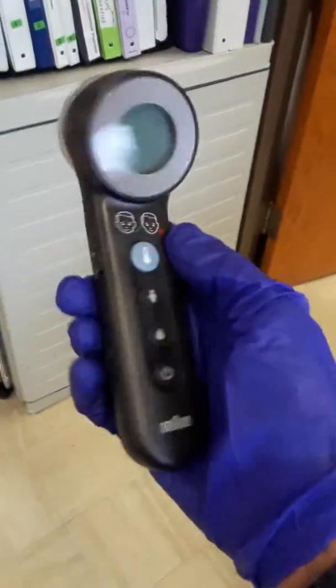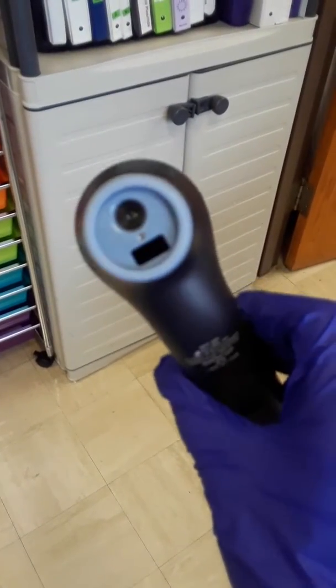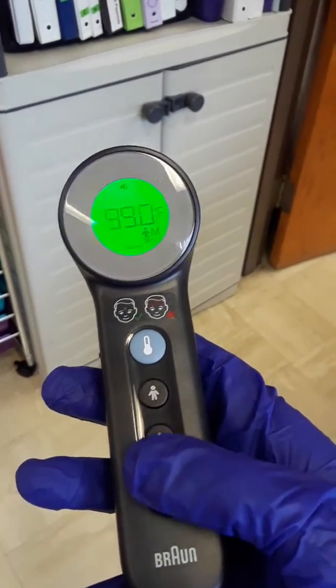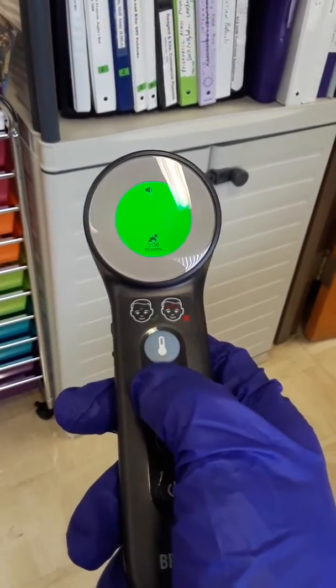Make that a habit each day. The other thing we do in my lab is we have one of these forehead monitor temperature meters. You can get them in different kinds with different features. This one is the type that doesn't actually touch the person — it just powers on and is set for a particular age group.